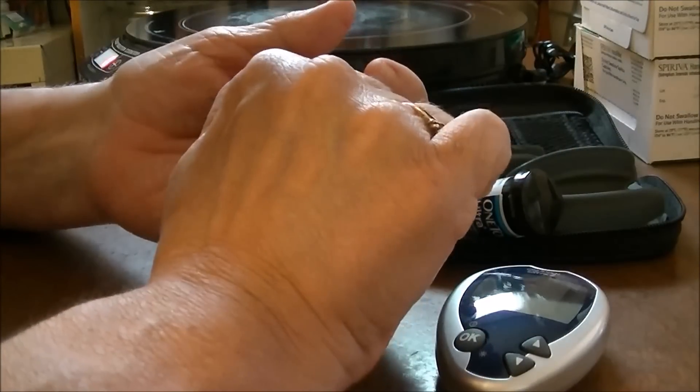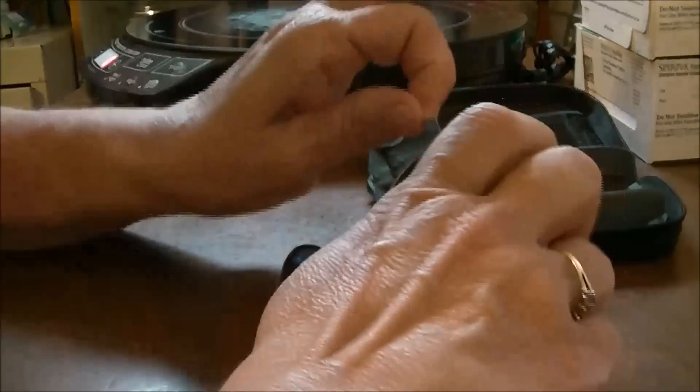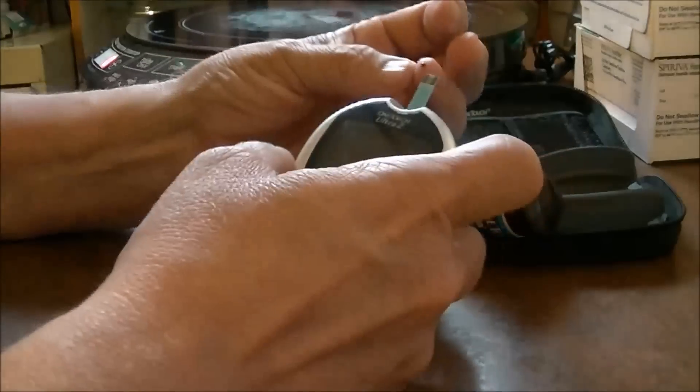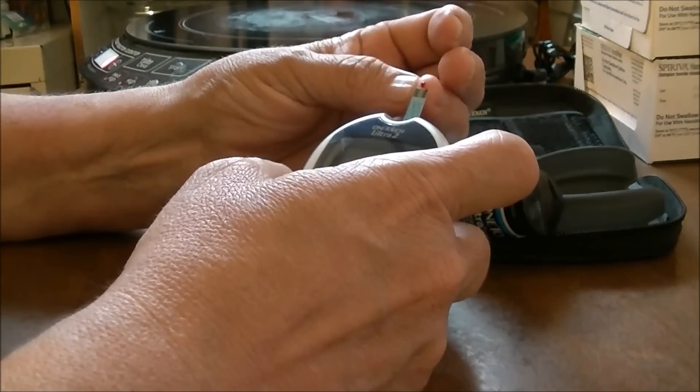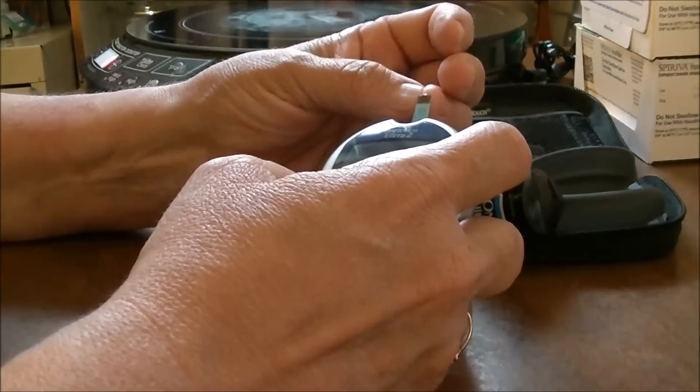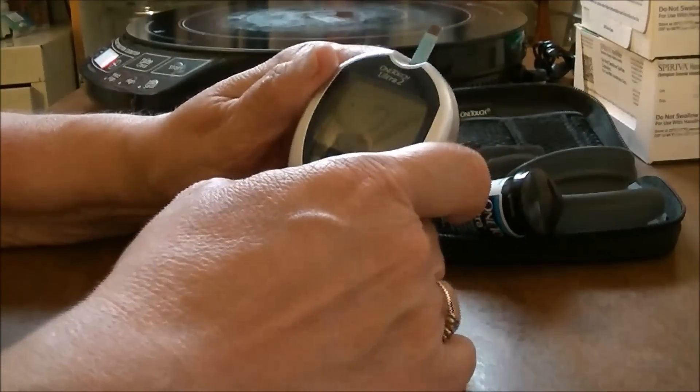Nope, blood's still coming out of that. See, that did not hurt one little bit, so just barely putting your finger on there. Alright, see it's ready. Alright, now it's counting down so let's see what my blood sugar is.